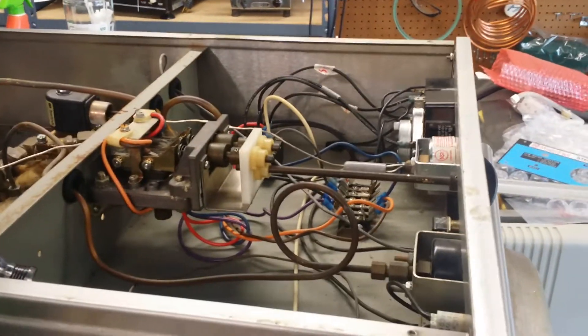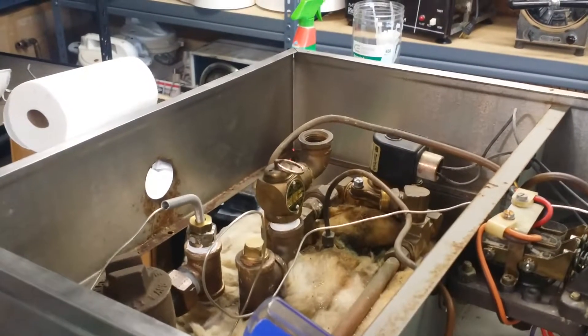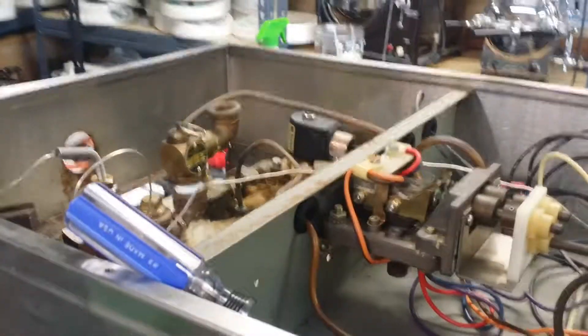This is the STM-E L — the temperature is adjustable. On the back side, the rear side, you will see the safety valve, the pressure sensor, the temperature sensor, and the exhausting valve.